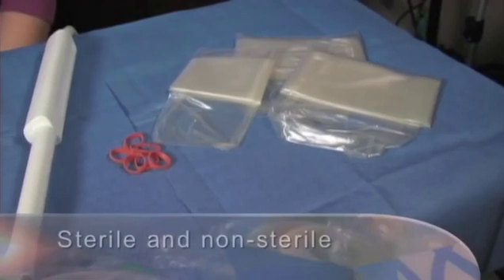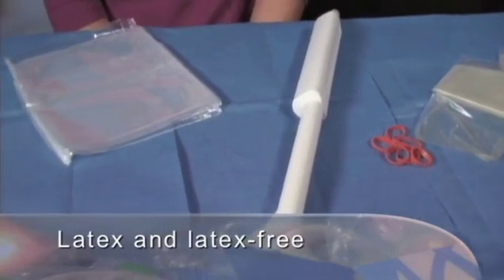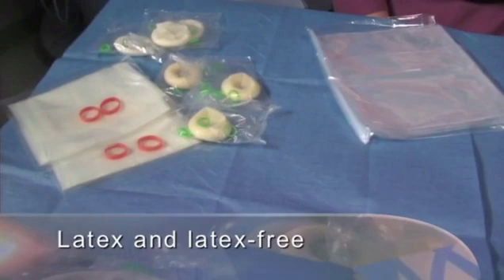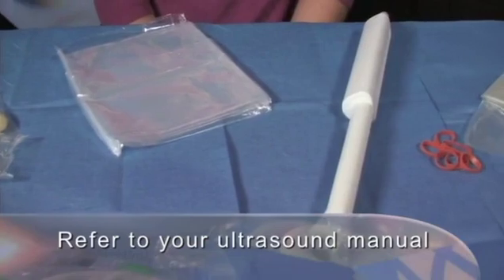There are several types of transvaginal transducer covers available. The most fundamental choice is a cover that matches the shape and form factor of the transducer you are using. Transducer covers are available in sterile and non-sterile forms in a variety of materials including latex and several latex-free alternatives such as proprietary materials like CivFlex or NeoGuard. If you're not sure which cover to use, refer to your ultrasound manual for your recommended accessory supplier. Now that we have an overview of some of the types of transducer covers that are available, let's take a look at how the transducer covers are applied.